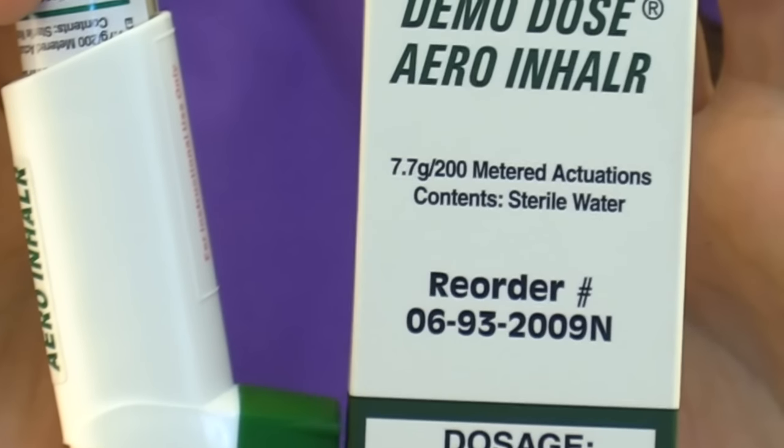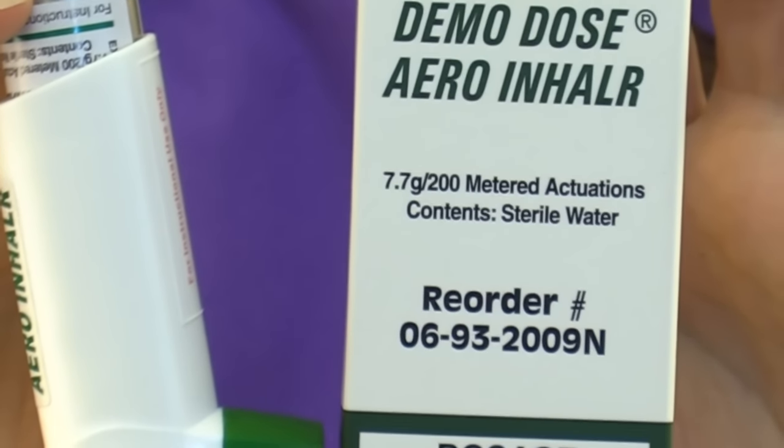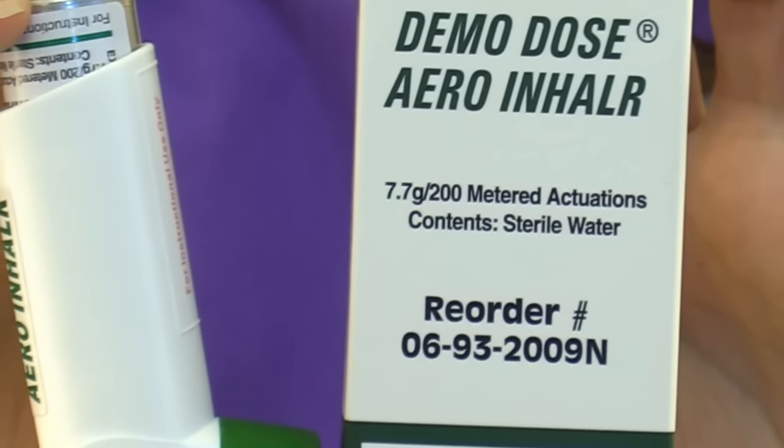In this particular one there are 200 sprays, so you'll want to count out how many times the patient is going to use it and how many days that will last. For instance, if the patient is using this inhaler four times a day — twice in the morning, twice at night — that's four puffs, and with 200 puffs that will last 50 days. So you want to keep track of that.